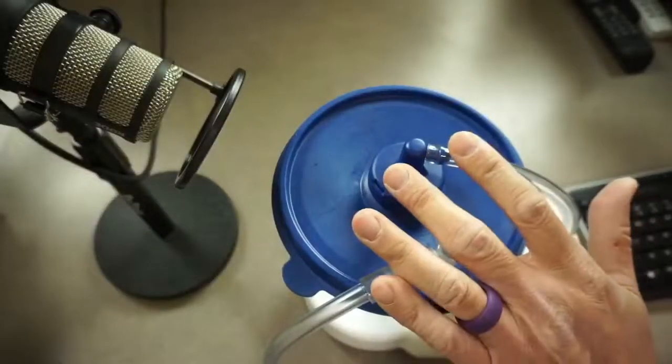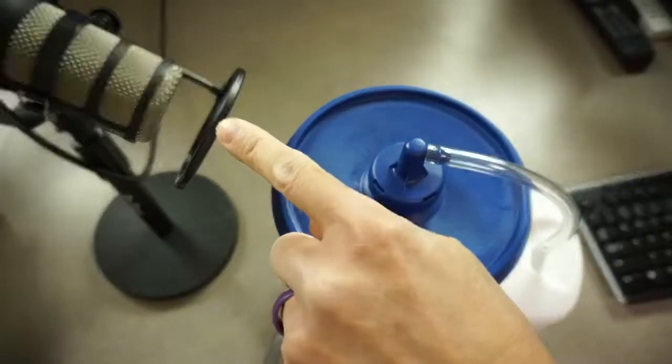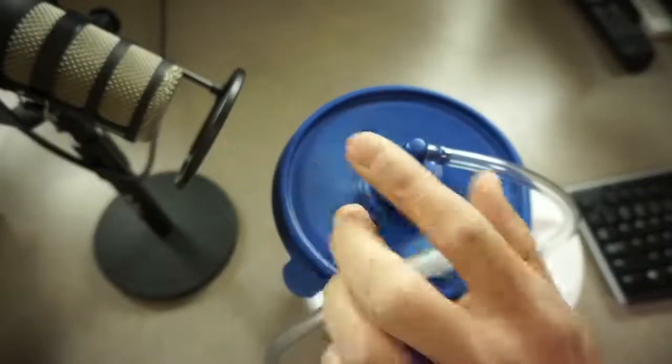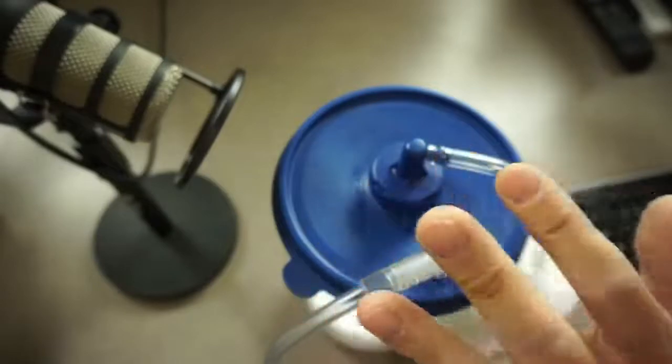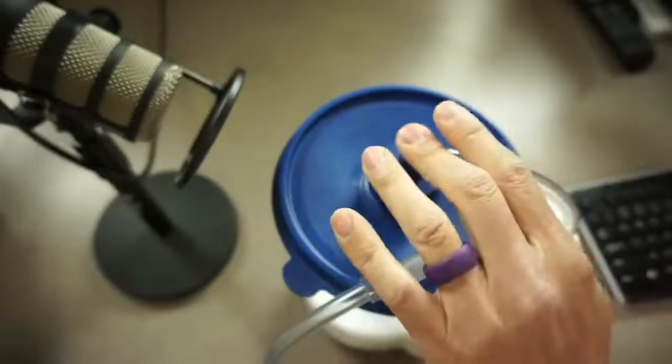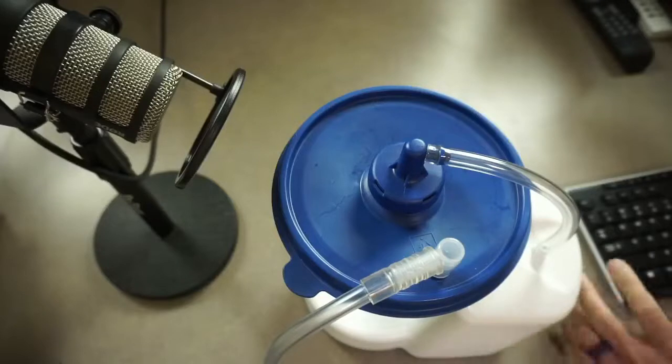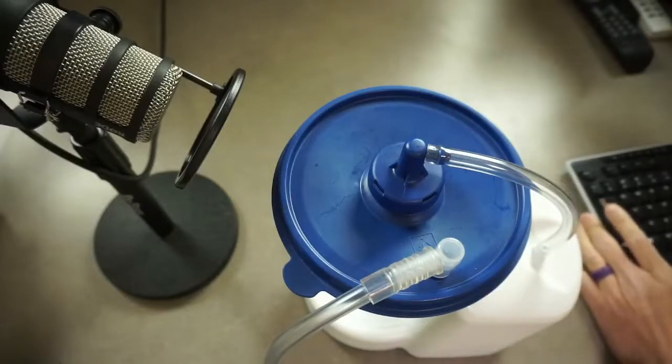So today, I have a Purewick and a microphone set up really close to it. So this is a very artificial environment, and I am trying to show you how loud or how not so loud this is. And in my opinion, it is not very loud.